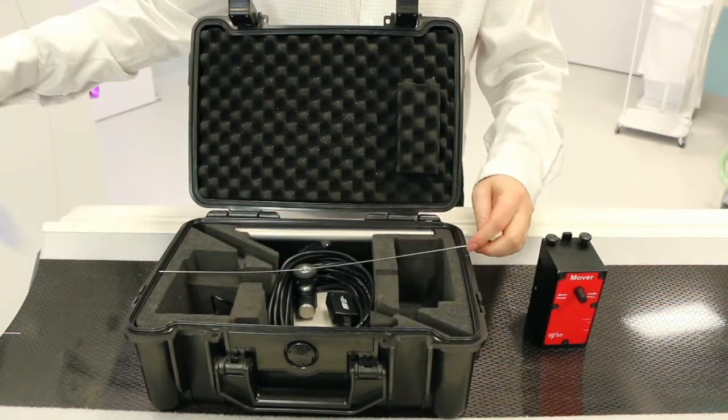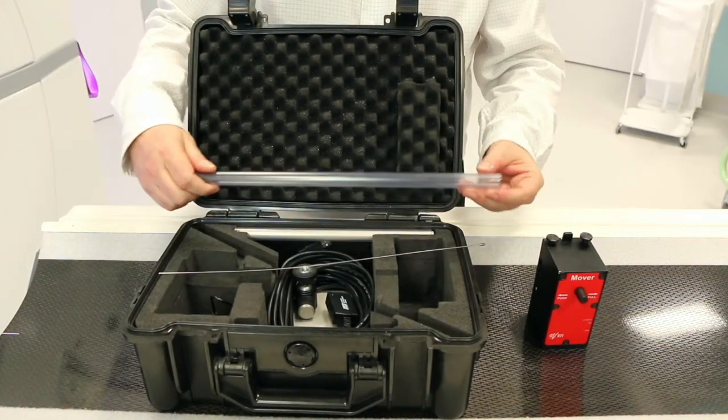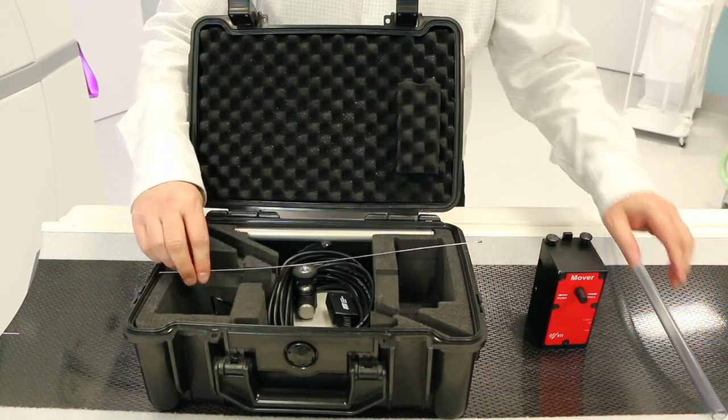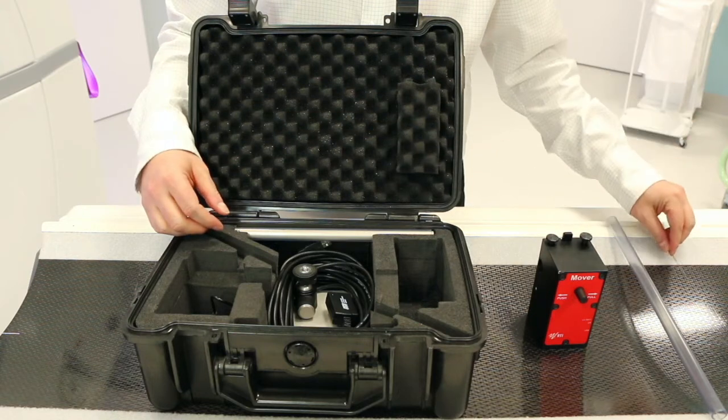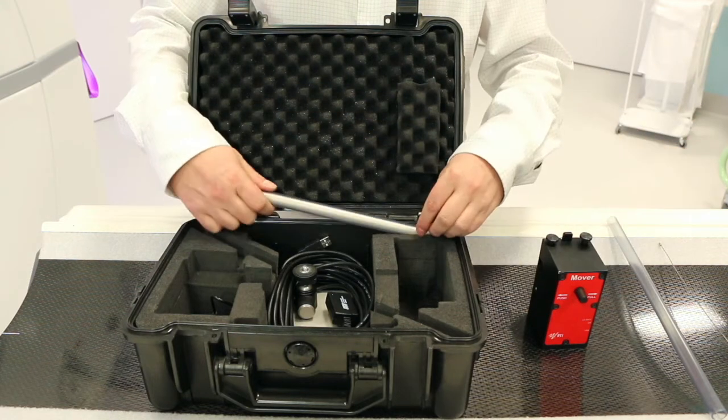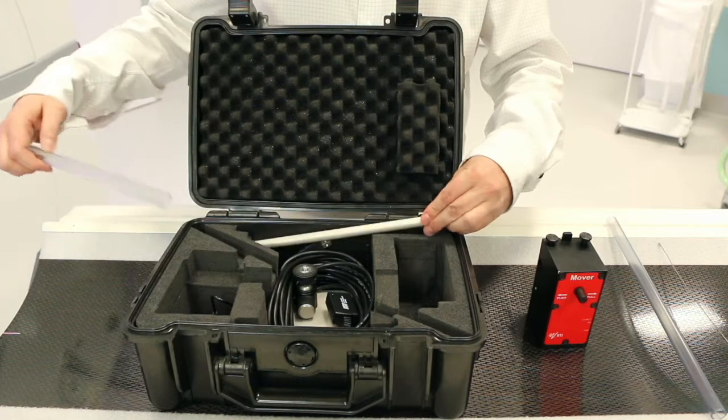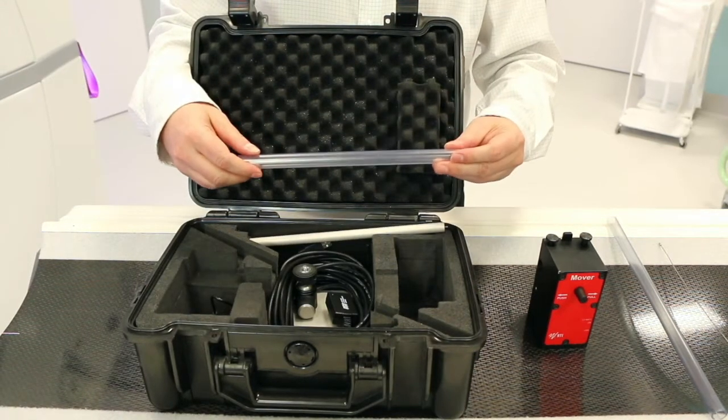This is the longer one of the two plastic rods. This one has a slit. A wire to attach the CT dose profiler. Plastic tube to support the CT dose profiler during free in air measurements.